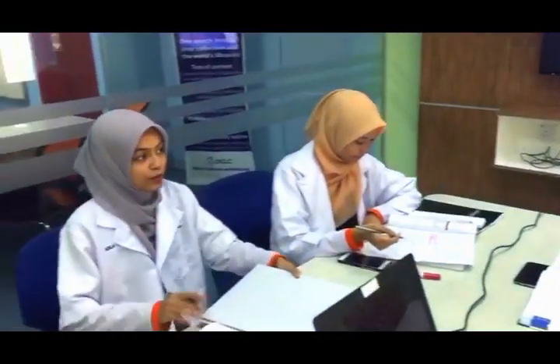Okay, can any one of you explain the slide that we got from our patient? Okay, anyone? I'll go first.